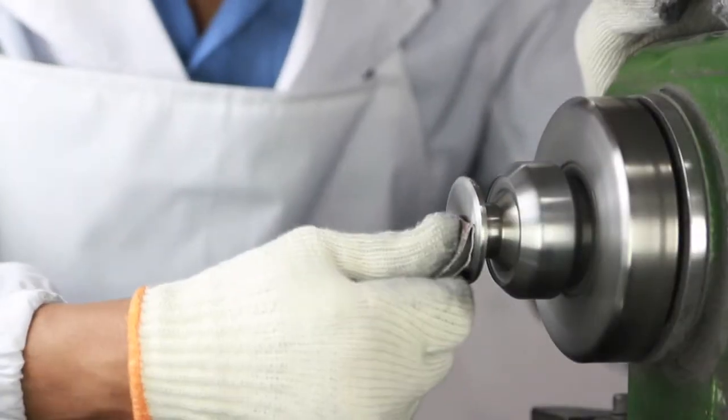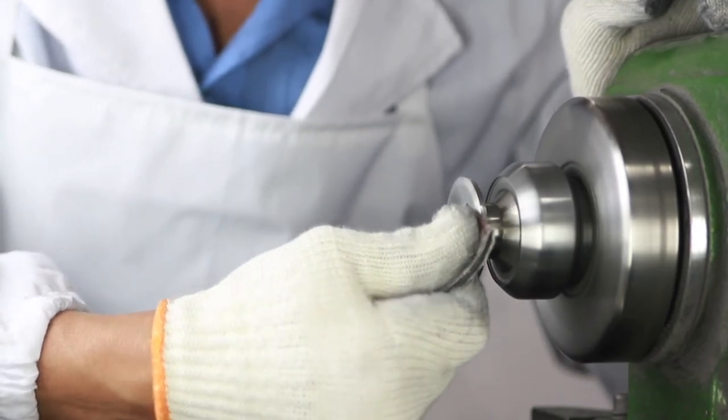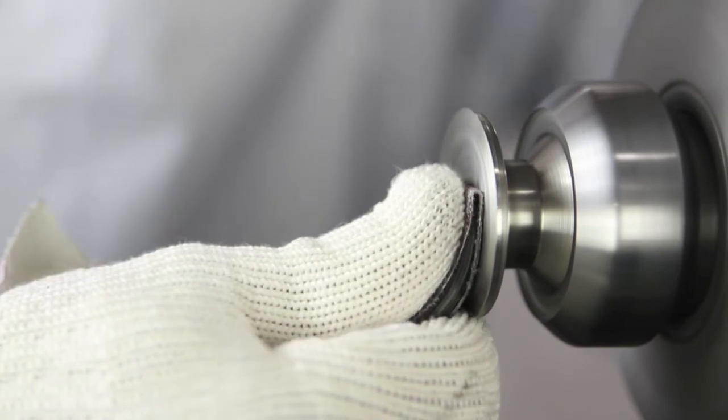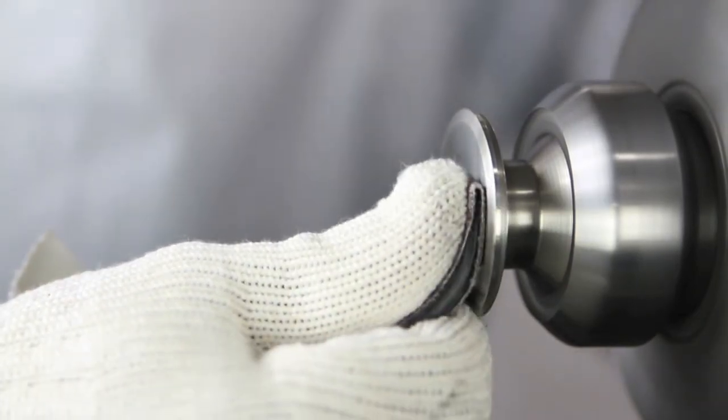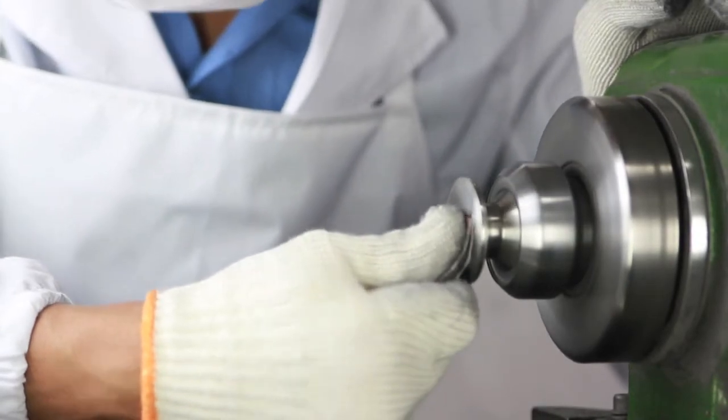Here's how the MD1 differs from the countless brands of stainless steel dual head stethoscopes out there. Following our craftsmanship tradition here at MDF, what we set out to do with the MD1 is really like what we did with all of our instruments, and it's very simple. We go with our craft and what's on the drawing board, and we throw out the cost analysis on spreadsheets.